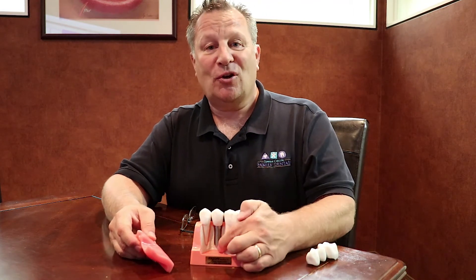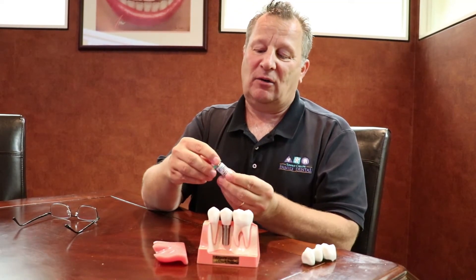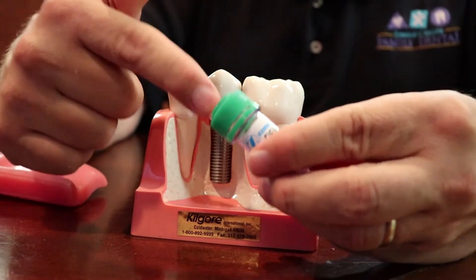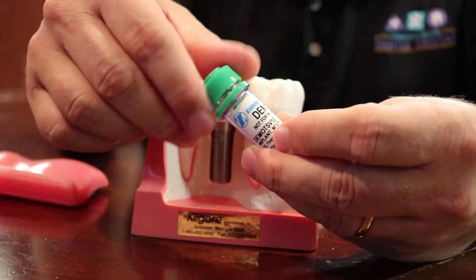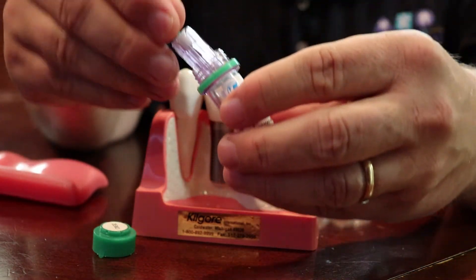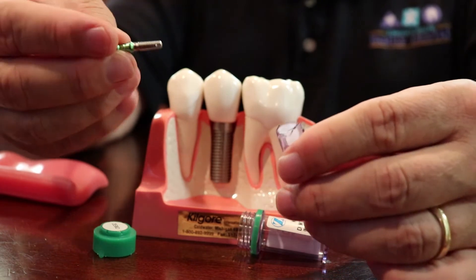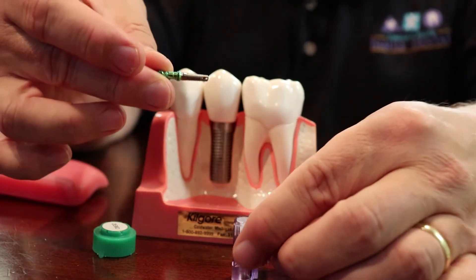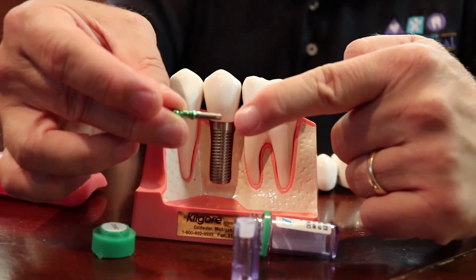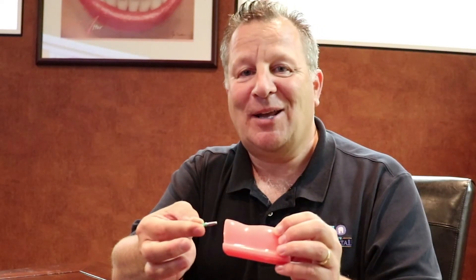Now if you want to get a closer look at what an implant looks like, I'm going to show you right now. An implant usually comes to a dentist in a container. The container is sterilized so that no one has ever touched it before. It comes out sterile and is often held by a little holding device — that's what the screen area is — and the actual implant is quite small compared to what you're seeing there. So in terms of size, this is what you're looking at. That's the dental implant — hope I answered some of your questions.